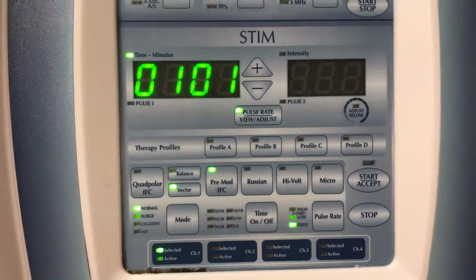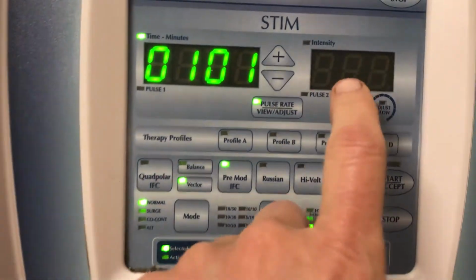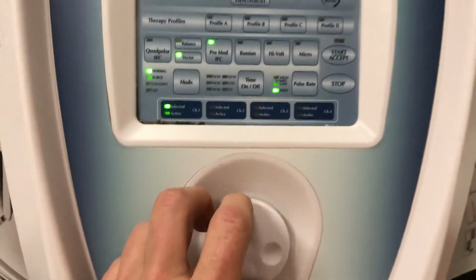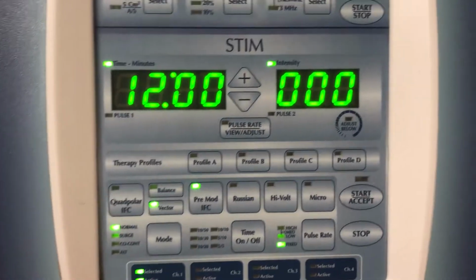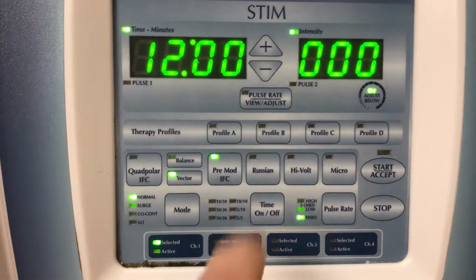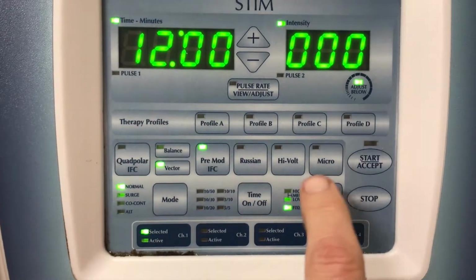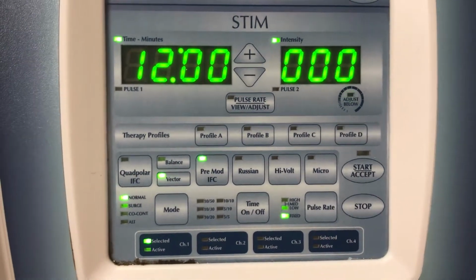So again, to recap, 3 things we're concerned with: intensity, and we haven't done anything with intensity yet. That would be here and would be controlled by this dial, but I don't want to be turning that up yet because I don't have any electrodes set up. Besides intensity, we have our frequency. We know what it is by hitting this, and we can adjust it by the type of either fixed or sweep by here. The last one being pulse duration.